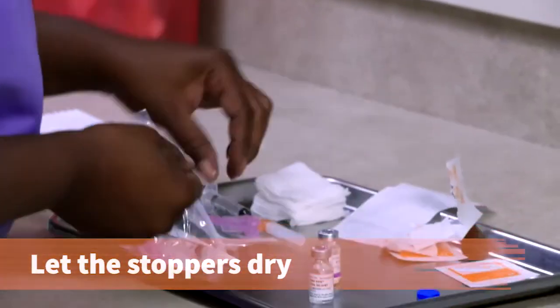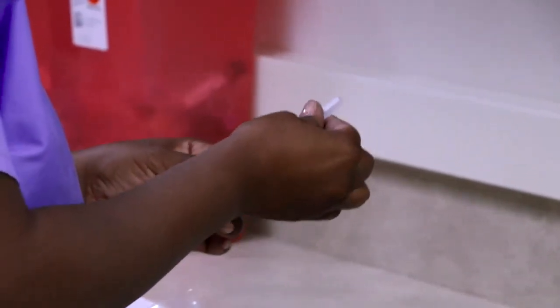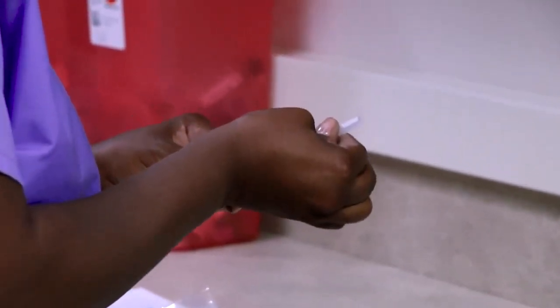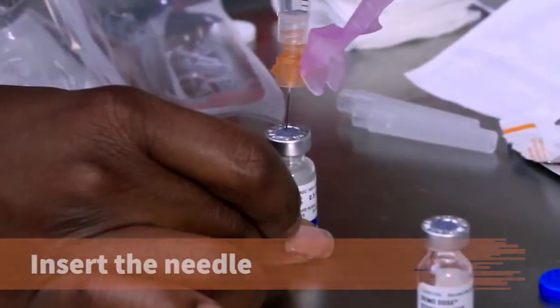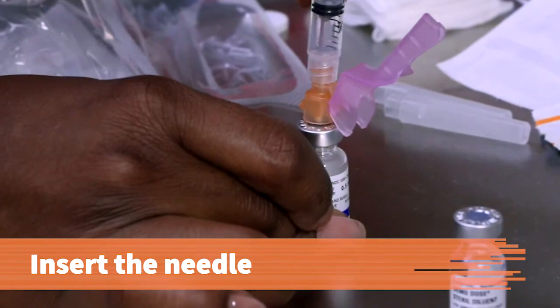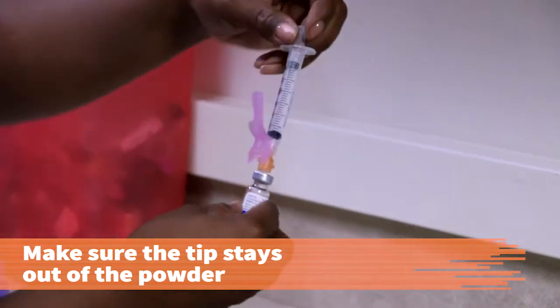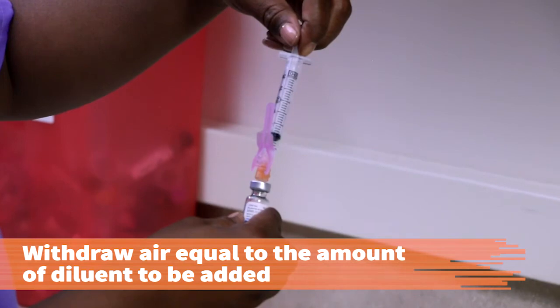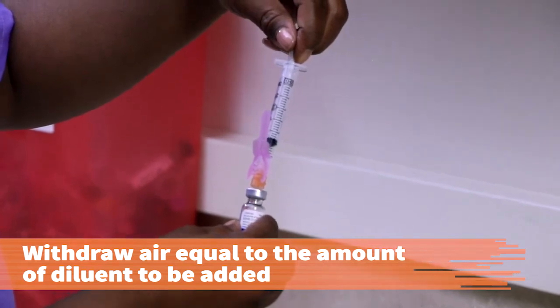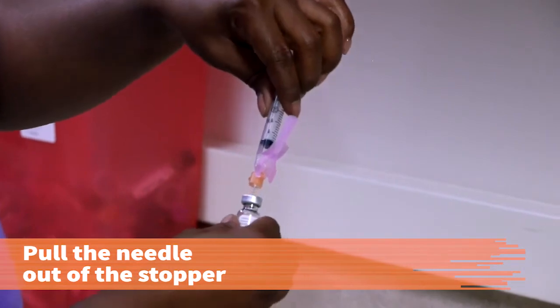Let the stoppers dry. To keep the pressure of the vial equal, you need to remove the same volume of air as the amount of diluent you'll be mixing with the medication. Insert the needle of the largest volume syringe unit. Make sure the tip stays out of the powder. Pull back on the plunger and withdraw air equal to the amount of diluent that must be added. Then, pull the needle out of the stopper.